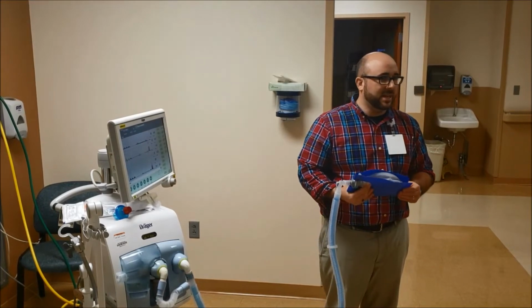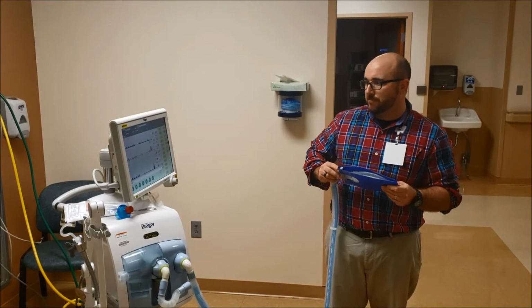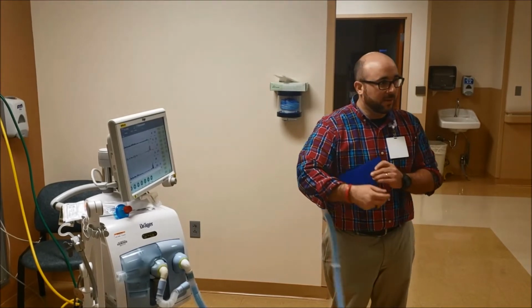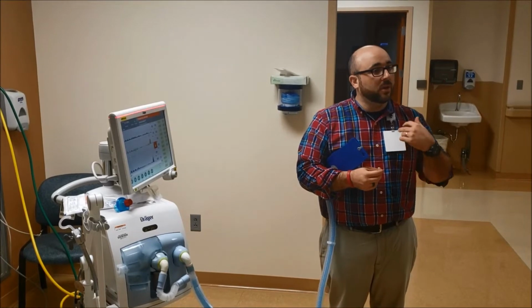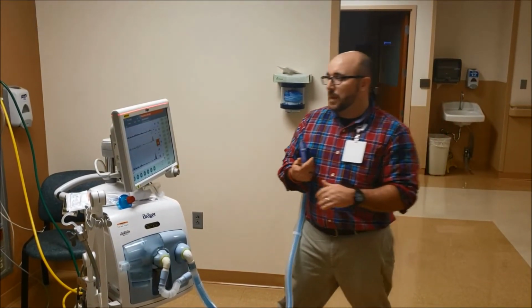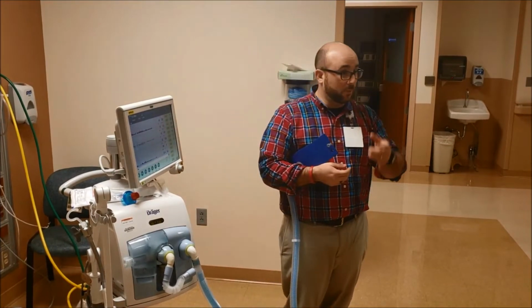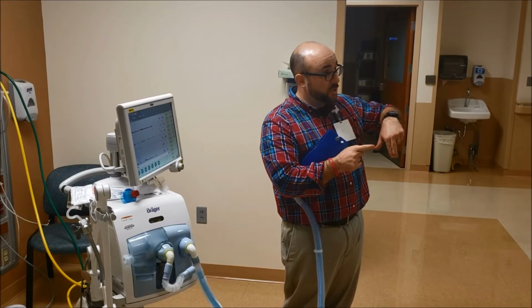If you guys ever have to extubate somebody, I know how we're taught in respiratory school, but when you pull the tube out, you want them taking a breath in during that time. Because your vocal cords naturally open when you're taking a breath in, but if you exhale, your vocal cords are closing, especially if you cough. I've seen people say, okay, now cough, and when they cough, they pull the tube out. That's not good because they're coughing, this is closing down, and you're pulling a tube through it.